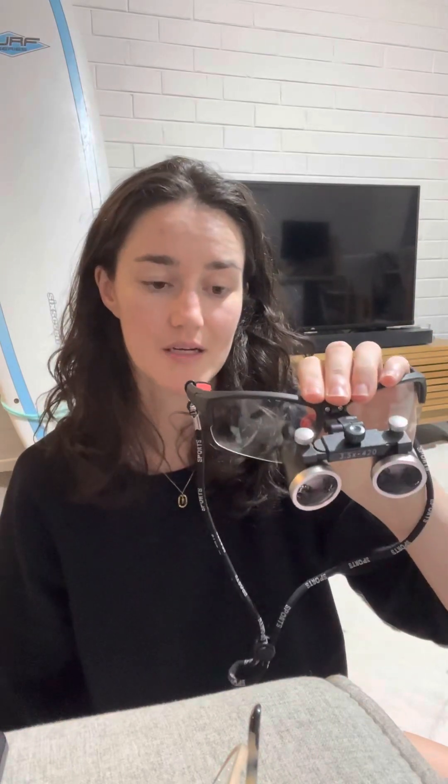They're really clear to see through. They give you all the benefits and the trial and error of getting used to it. I got the 3.5 magnification. They're really good. I thought higher mag meant less hunching to see, which is kind of true. But I still found myself arcing my neck to look around. I actually found that 3.5 for me felt a little bit too much. I feel like dropping back to maybe a 3 or 2.5 at this point in my career is probably all that's necessary. I found that you can get a bit dizzy with the higher magnification when looking from your tray to your working space, going backwards and forwards.